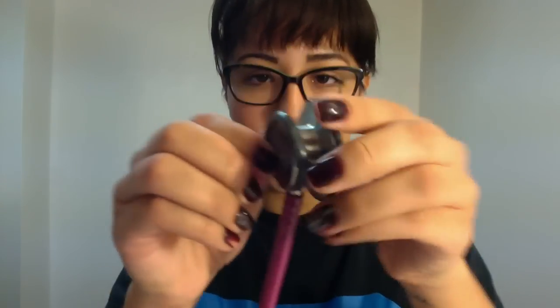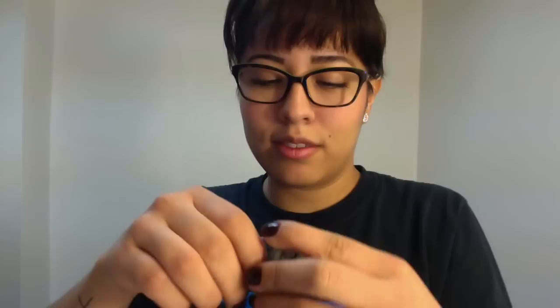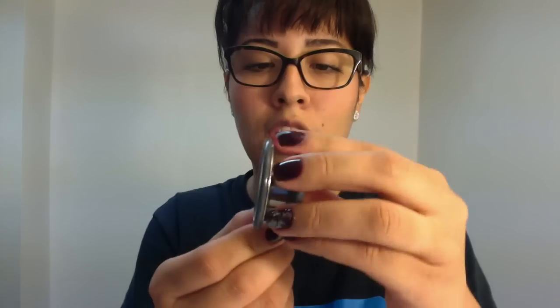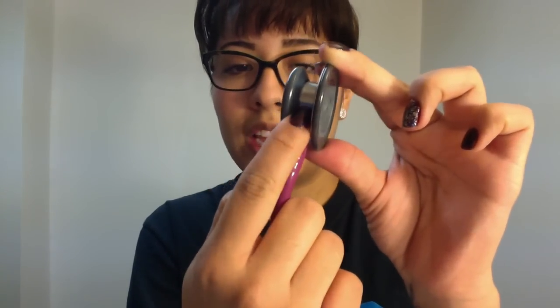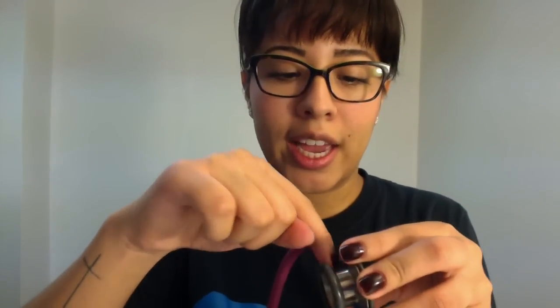You can also push this little plastic or rubbery piece back and clean behind there too. It's a little bit hard to put the rubber back in, but it's not impossible. When it comes to cleaning in between this area, it gets a little hard because my fingers are pretty big. What I use is I'll put the Clorox wipe down and grab a pencil or a Q-tip — whatever is small enough — to guide the Clorox wipe in there to clean it.